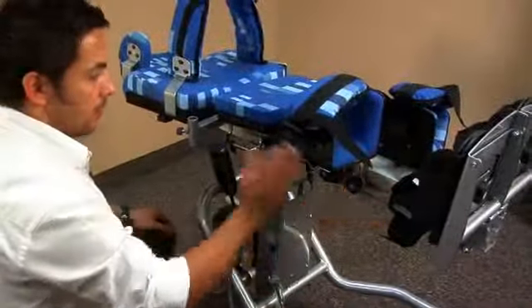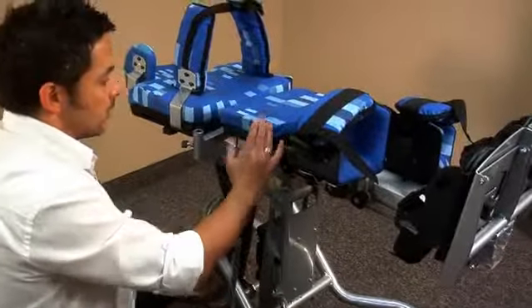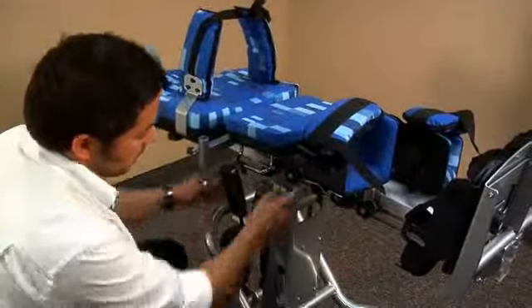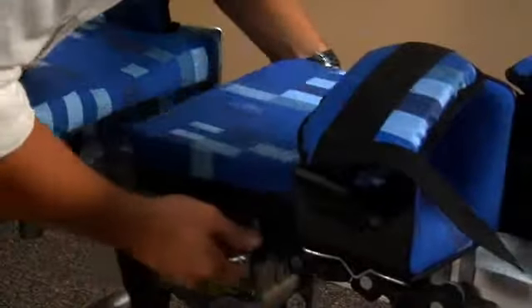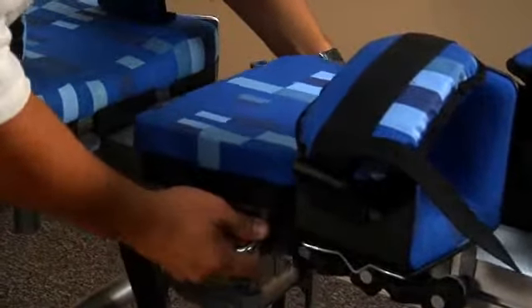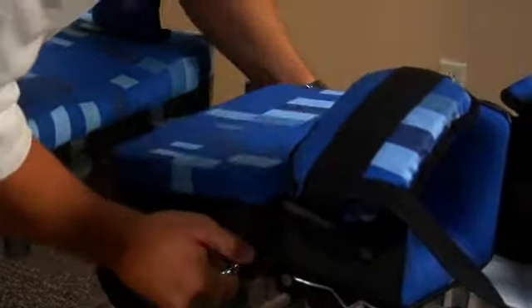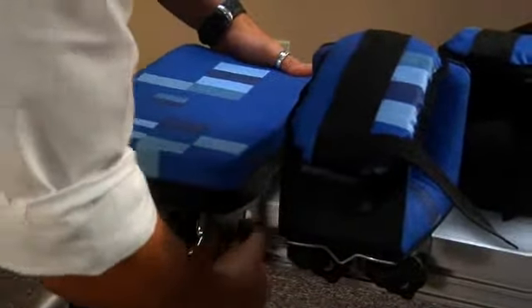Starting from how the user's transferred, you usually get the hip height in the right position. Via the knobs at the side here, you can height adjust the hip, and also depth adjust the hip, and there's a little bit of rotation there. So you can get that hip pad into a really good position.